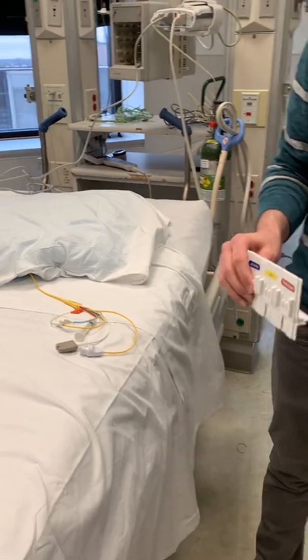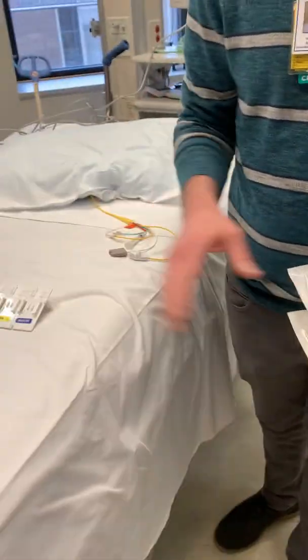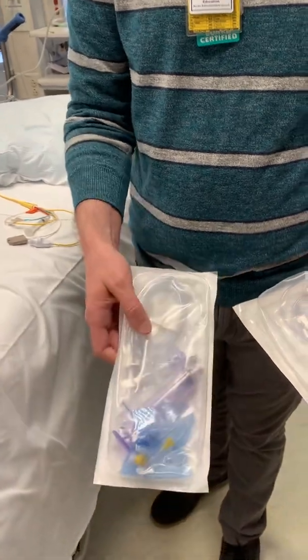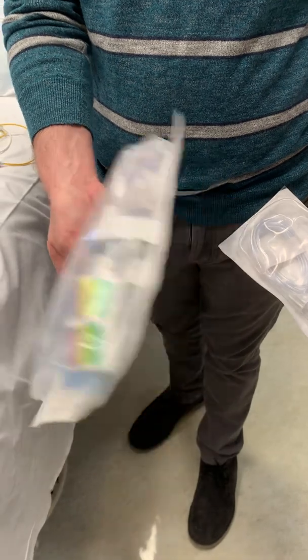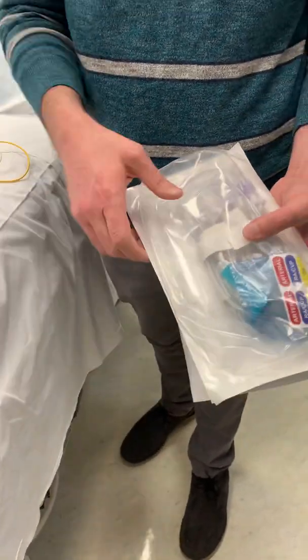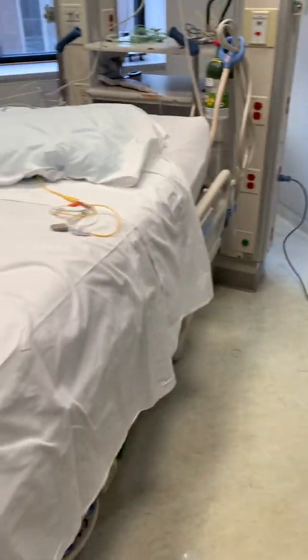So this is the equipment you're going to need. This is nice to have — your manifold for your tubing. This is your cardiac output setup. And then there's a type of pressure tubing in the supply room that has two — it's a bifurcated pressure tubing. And of course you need your pressure bag the same way.